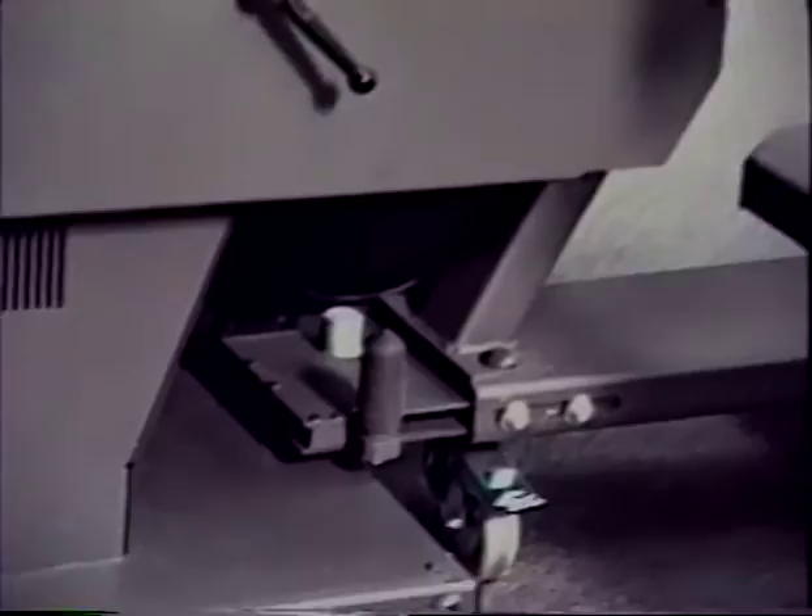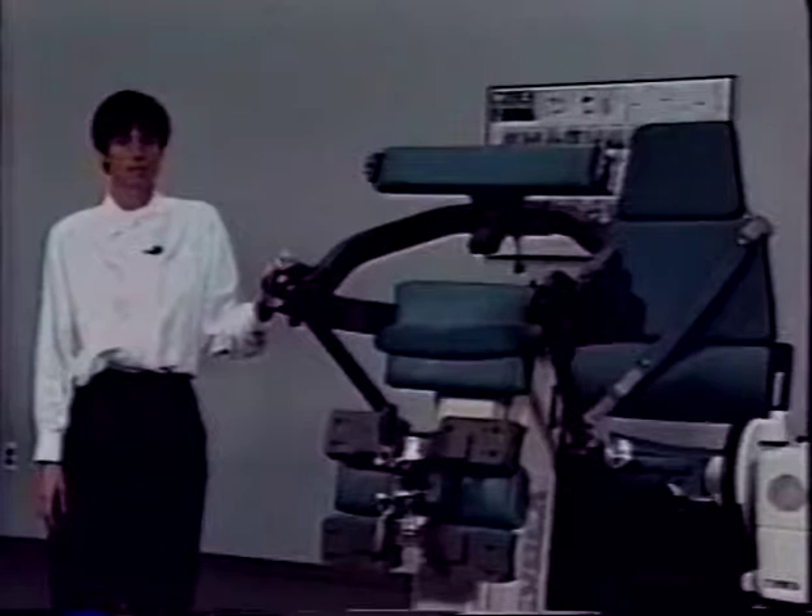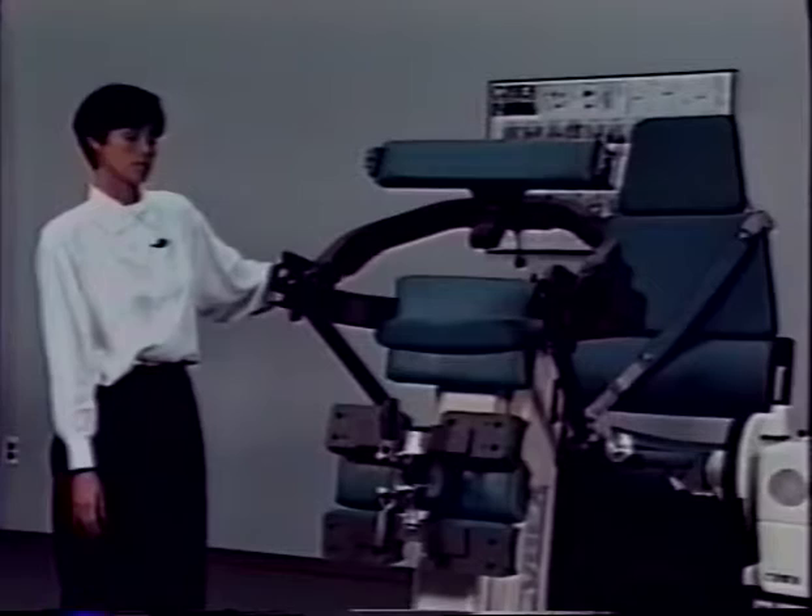At this time, the post acts as a fulcrum and you can rotate the TEF modular component towards the 6000 dynamometer. Prior to docking the TEF modular component, make sure the Cybex 6000 seat is in the full aft position and the contralateral limb stabilizer is up.